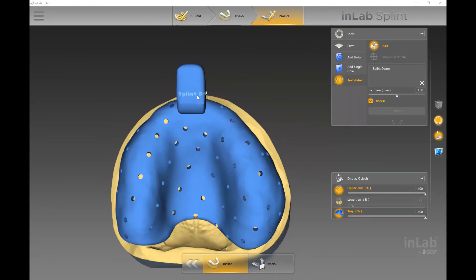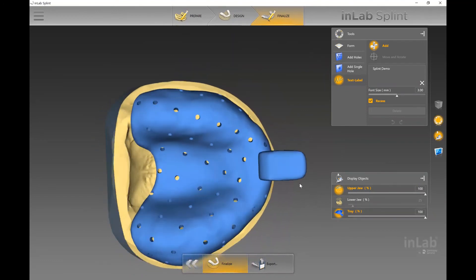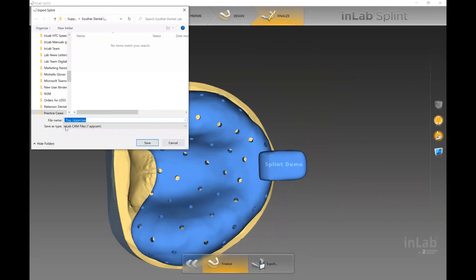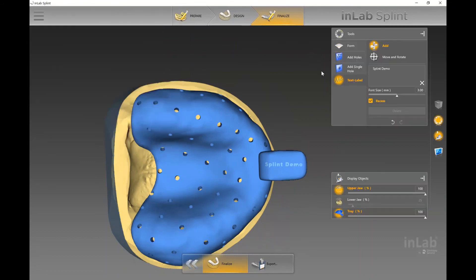The 'Add Text Label' option is handy, especially if you're printing multiple trays at the same time — you can identify the patient name or office name to keep everything on track. Most would put the patient name and then double-click on the handle to place it. At that point you're ready to export as an STL. When saving, make sure you select STL as the file type.